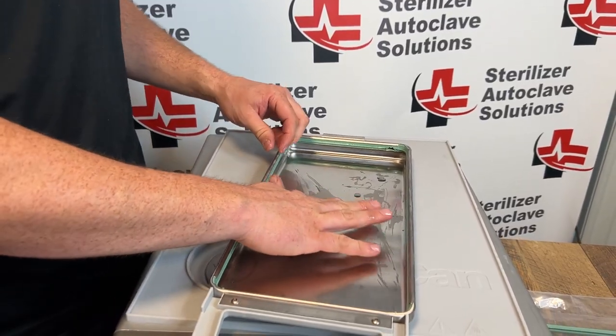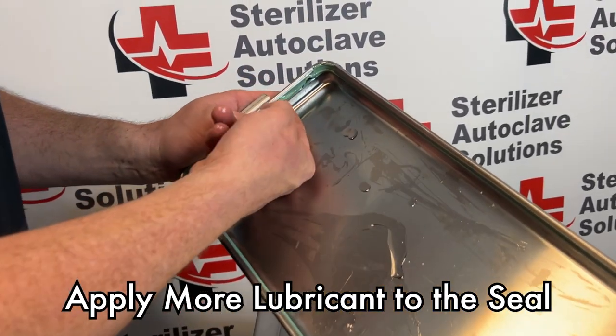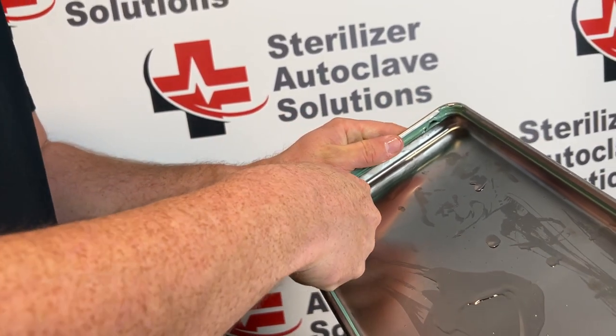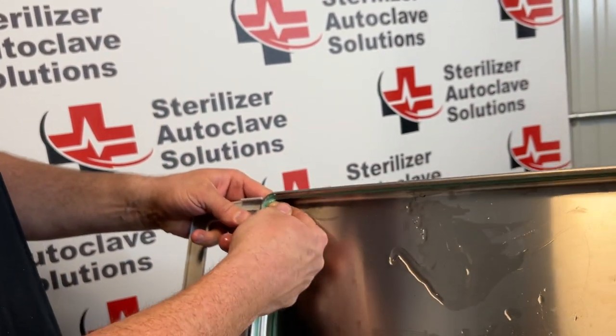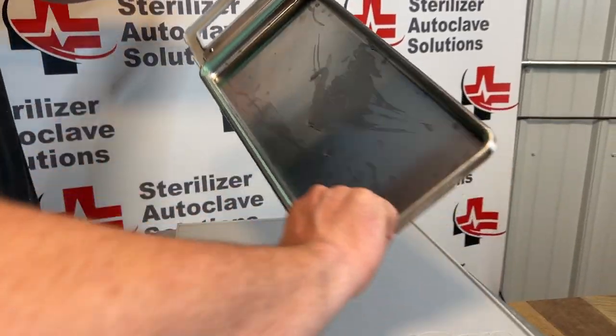Last, I'm going to take a finger, put it back into that lubricant, and run it between the grooves all the way around, pushing out towards me. What this helps do is just complete that seal. We're going to do that all the way around.